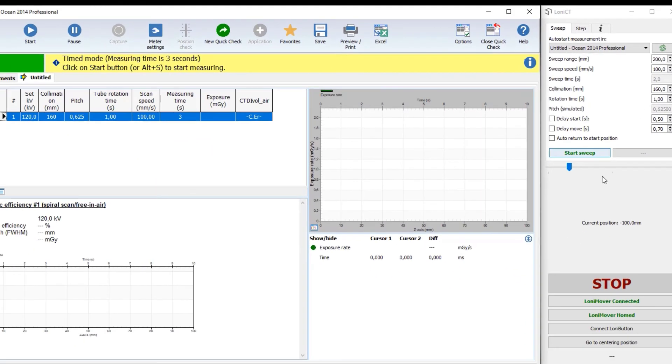This data is also entered in the ocean template giving the software proper input for the measurement.